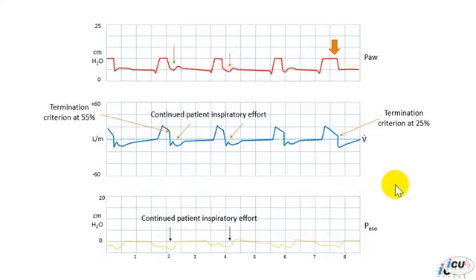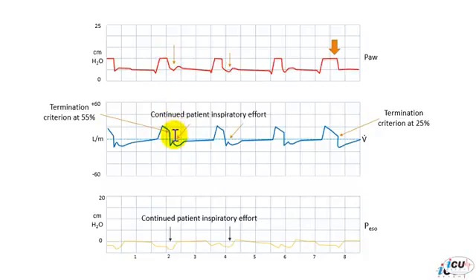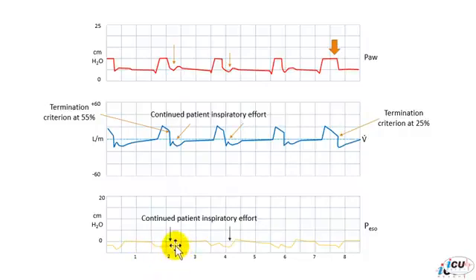On the other hand, the patient may not finish his inspiratory efforts; however, the ventilator is finished with the inspiratory time. This is a patient on pressure support mode of ventilation where the cycling mechanism is defined based on the flow. In this breath, the machine will cycle when the flow gets to 55% of the maximum inspiratory flow. The breath is ended at this point; however, if you look at the esophageal pressure tracing, you can see that the patient continues to have inspiratory efforts. These inspiratory efforts are reflected in the rise of the flow to the baseline, caused by the patient's continued inspiratory effort despite the ventilator breath being ended.